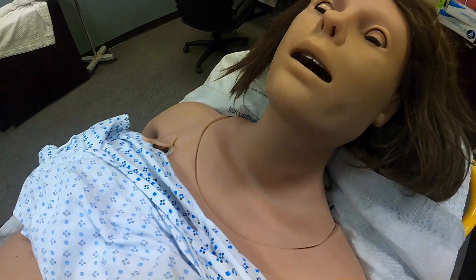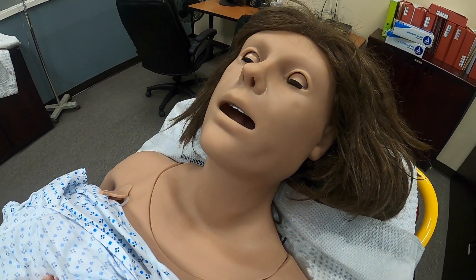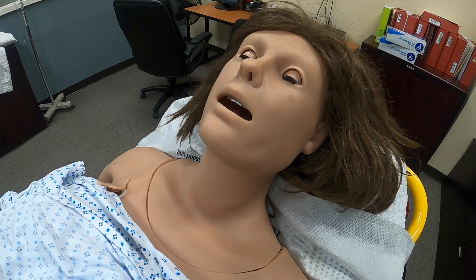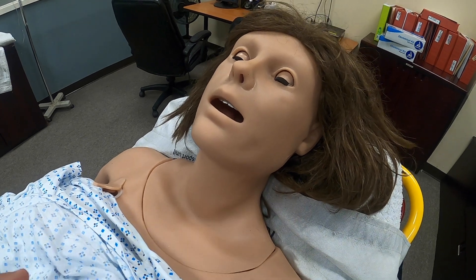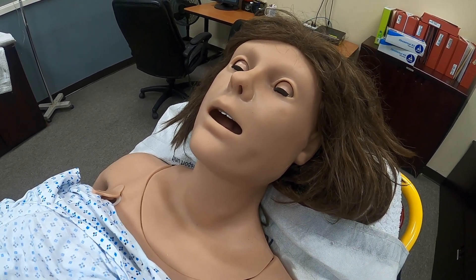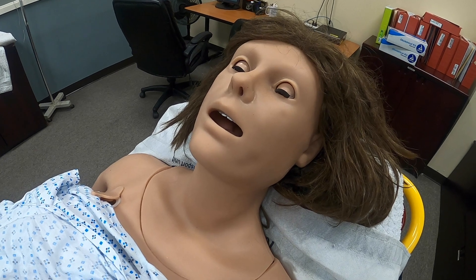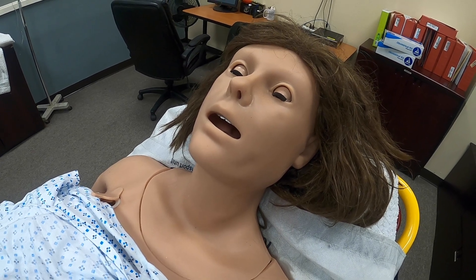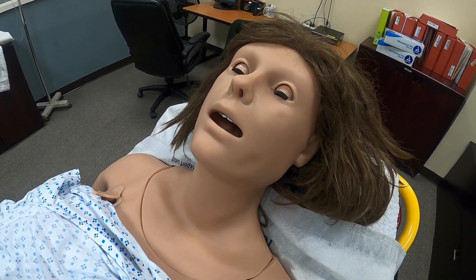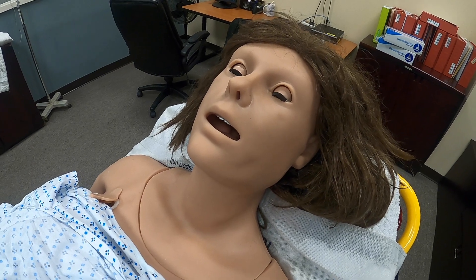This mannequin has a full array of pre-recorded sounds, words, and phrases that will be said throughout the scenario. We can also use a microphone with the instructor in a different room so the instructor can act as the patient.